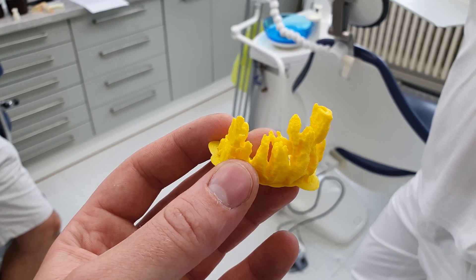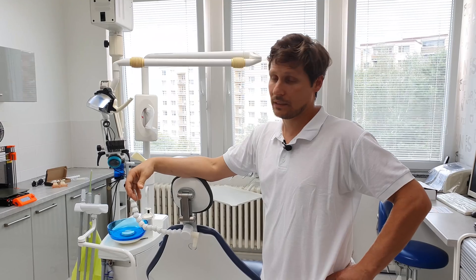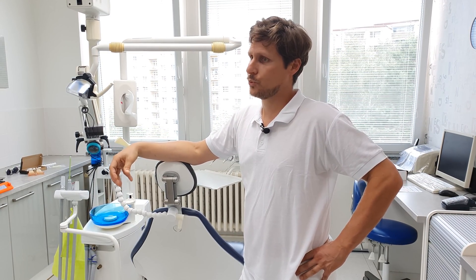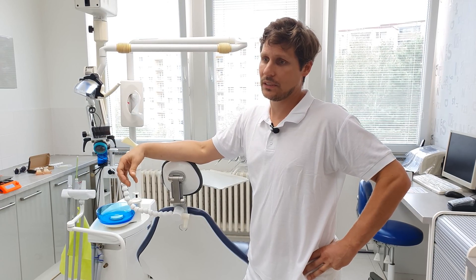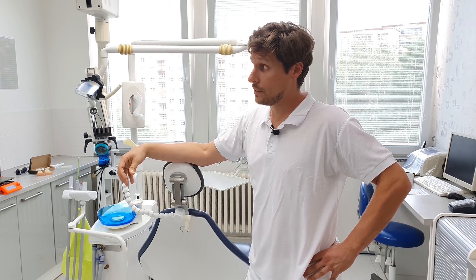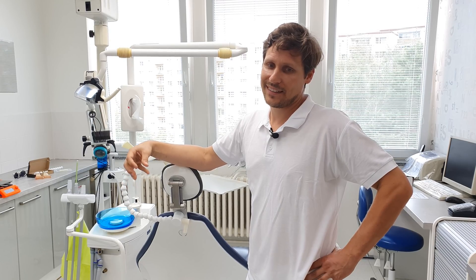It gives me a much better overview of the entire situation. This way dentists can get acquainted with a patient's teeth or even with bones or the entire skull prior to a complicated operation. This helps to speed up the entire process and lower potential risks thanks to a better overview of the situation. It's also possible to print various accessories and tools that can help during the procedure — mainly various guides for rotary or cutting tools. This speeds up the procedure, which means the patient does not have to be anesthetized for so long. A thorough preparation allows the doctor to work with greater confidence and precision.